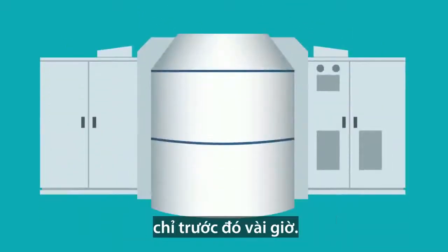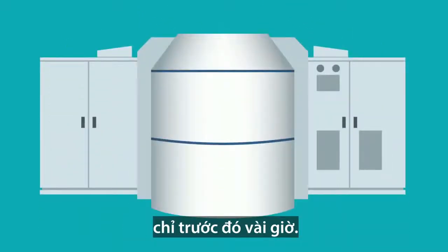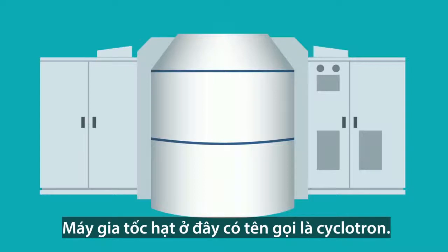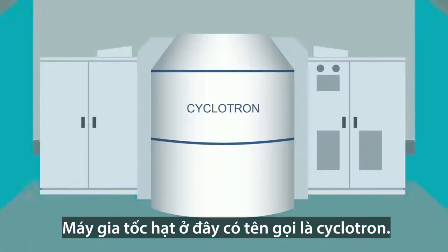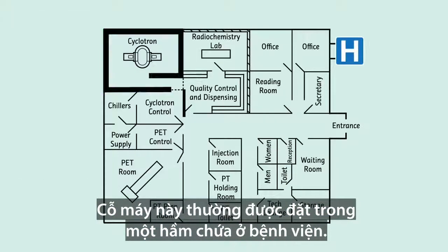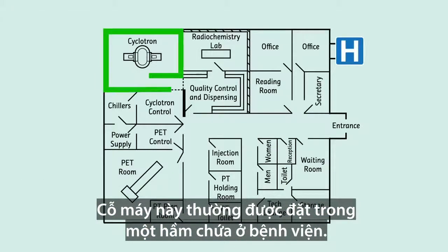Their life begins in a particle accelerator just hours earlier. The particle accelerator in question is called a cyclotron, and it's often housed in a bunker within hospitals.